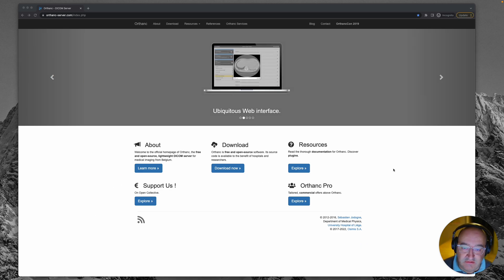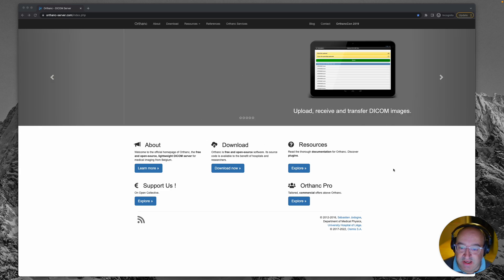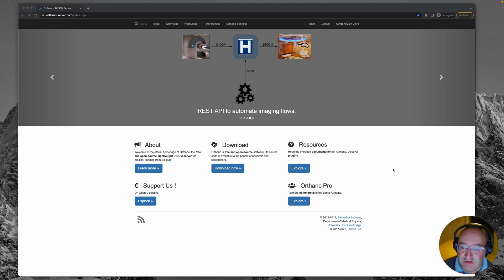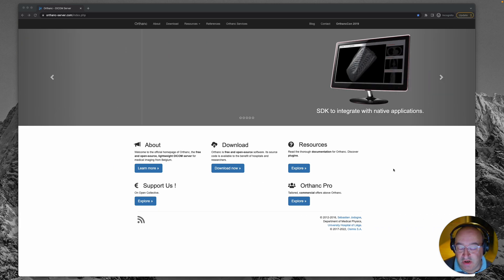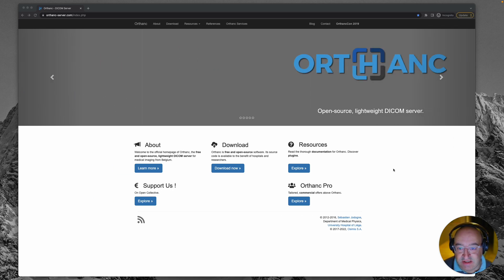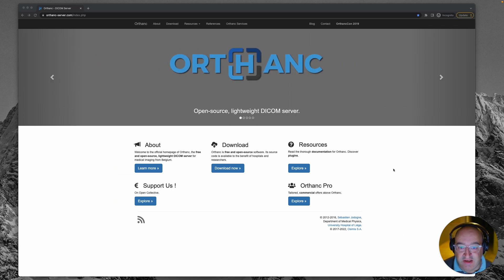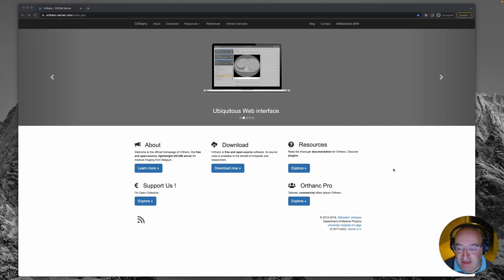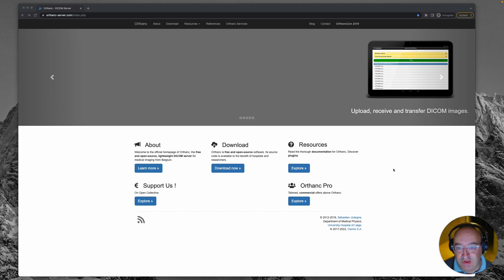The reason I'm actually playing with this is because I want to use Orthanc's REST API features to power a website which handles DICOM medical data, and I want to use this as the backend which handles all of the DICOM files and then actually serves them up through a web-based viewer.